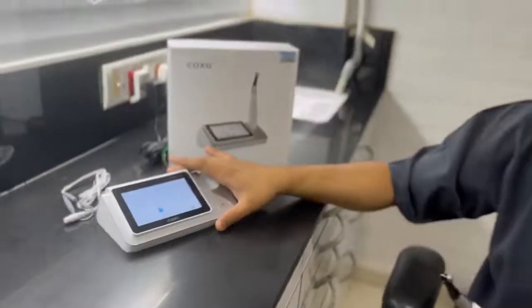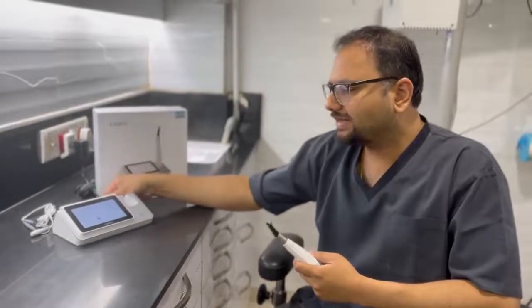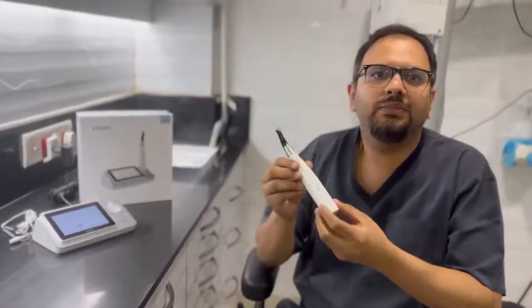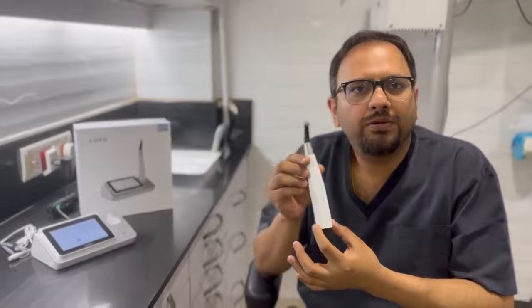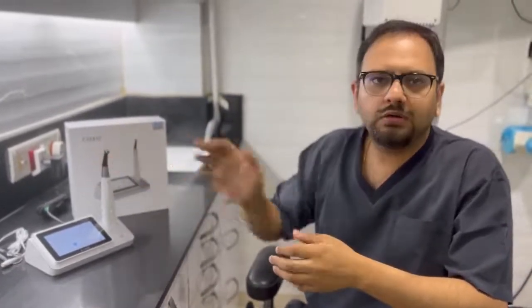This base model also has an inbuilt battery. So if I need to carry this around and I end up having low power on my cordless device, I don't need to charge this. I can simply put it back on the base model and it starts charging it, and you can charge it up to 3 to 5 times.